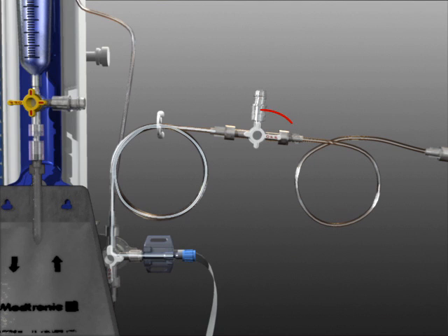Be sure the patient line stopcock is off in the direction of the patient's catheter, so fluid does not drain out of the patient line. Once priming is complete, be sure to rotate the stopcock below the drip chamber prior to opening the system to drain.